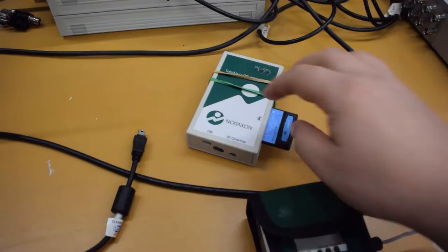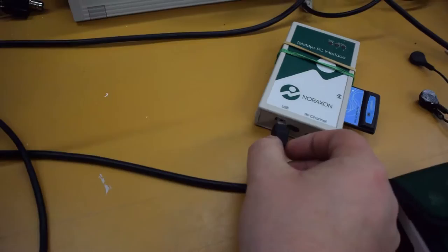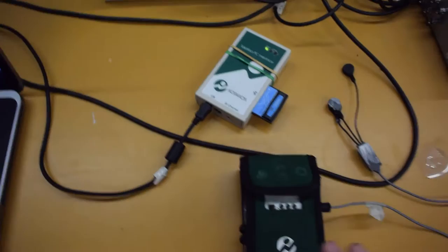And then the next thing that we are going to do is we are going to move to the equipment that we need for this collection. So here is the piece that speaks with the computer through the wireless adapter of the EMG. This is just a USB port, so we will ensure that this is plugged in to the base here. And when done correctly, you will see lights turn on. So it is fantastic.